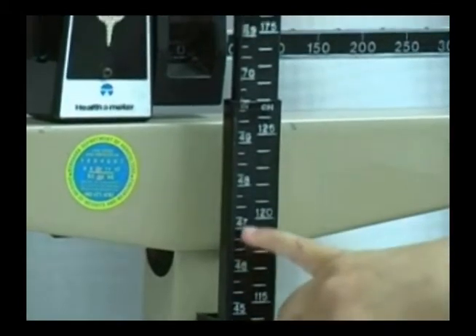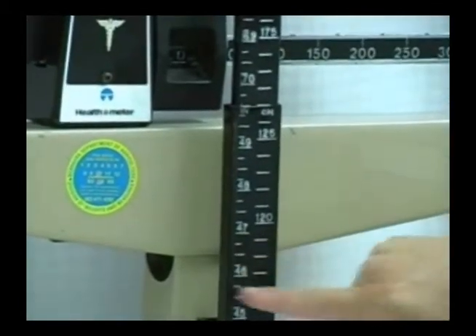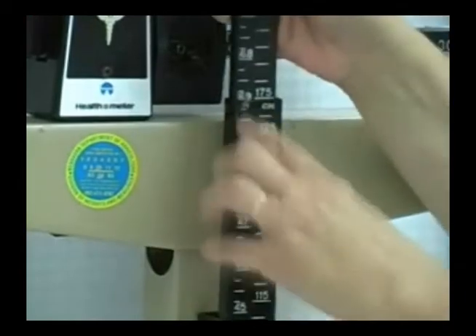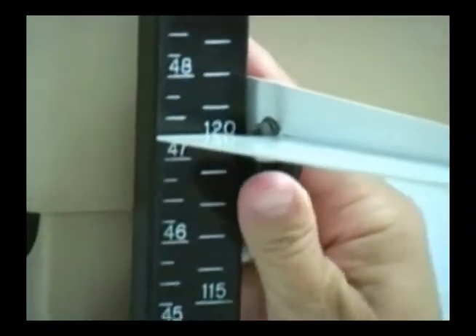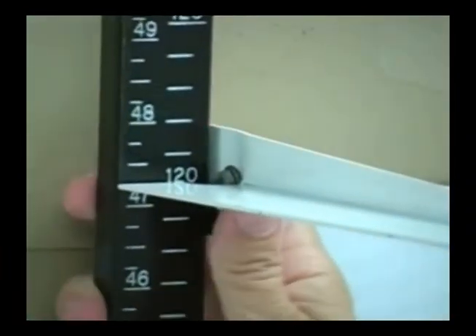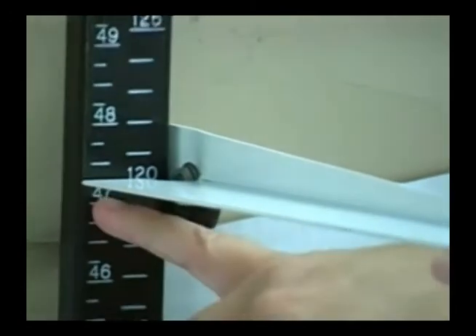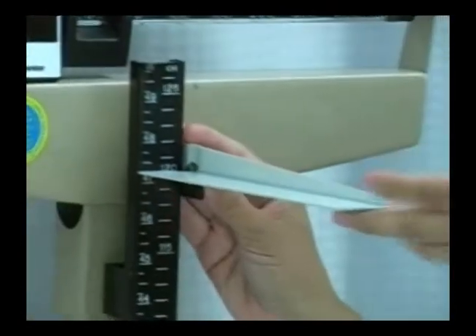And what you do is, these are marked in quarter inches here. So if this person is less than 49 and 3 quarters inches tall, if this person stood on this, let's say I had a person here, and they stood on this scale, this would be 47 and 1 quarter inch tall.